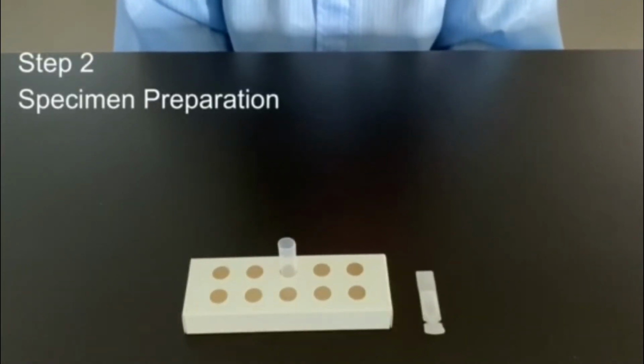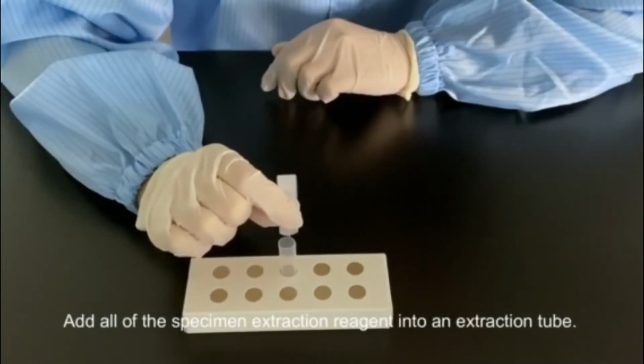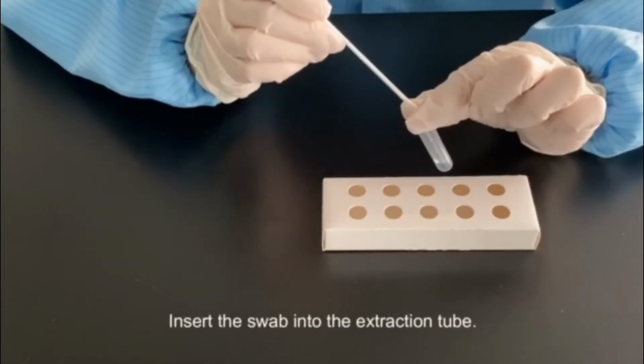Step 2. Specimen preparation. Unscrew the lid of an extraction reagent. Add all of the specimen extraction reagent into an extraction tube. Insert the swab sample into the extraction tube.